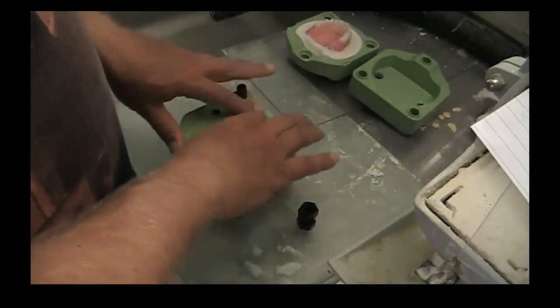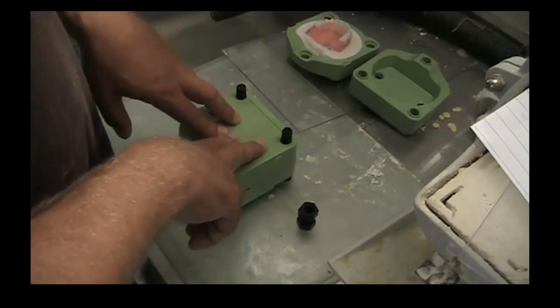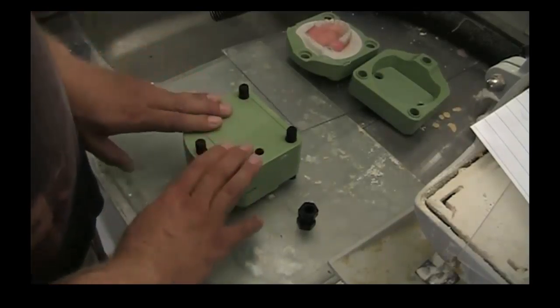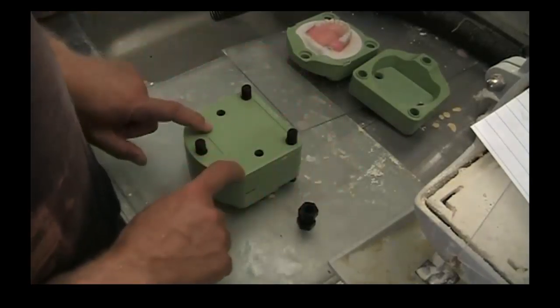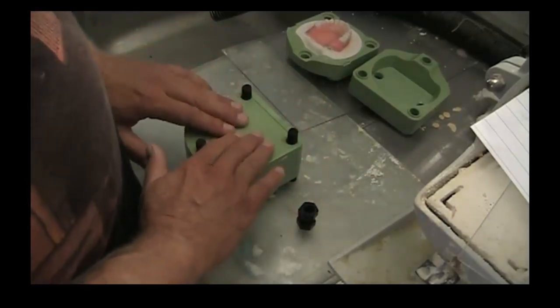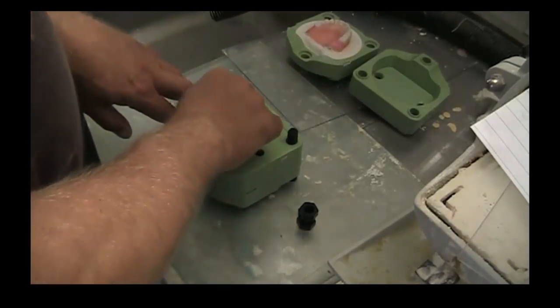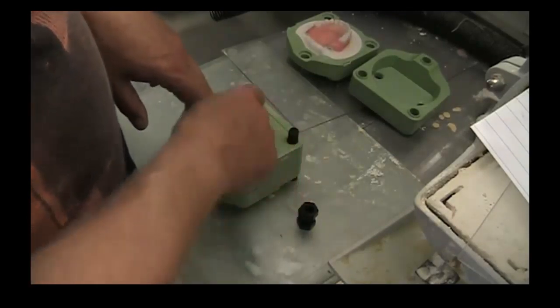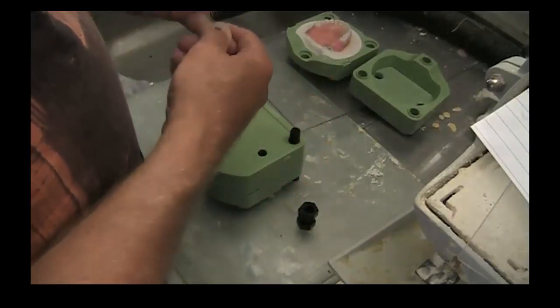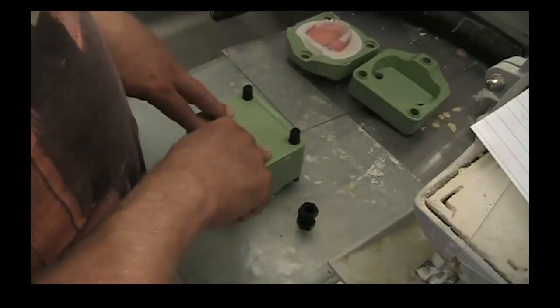That's the same thing with this flask as well. With the FRP flask, I've been pressing these at 1000 psi for my trial packing, and then of course up to 2000 psi for my final closure and tightening of the flask. There is a plate that you can purchase - a metal plate that goes on top - as an extra component which would protect the top surface of your flask. In eighteen months I haven't had any issues, so I didn't feel the need to purchase it. Also, that piece of metal takes up a bit more height if you don't have a lot of room to slide your flask underneath your press.